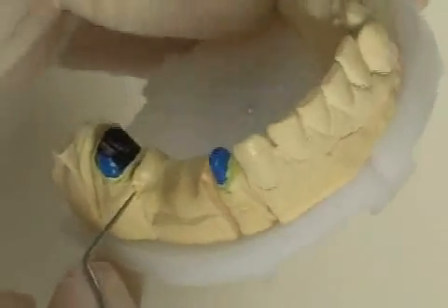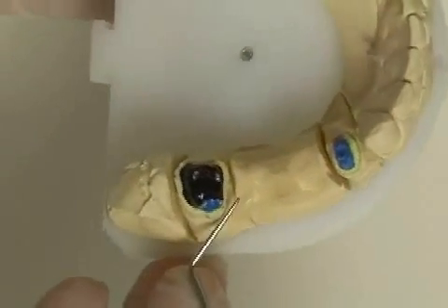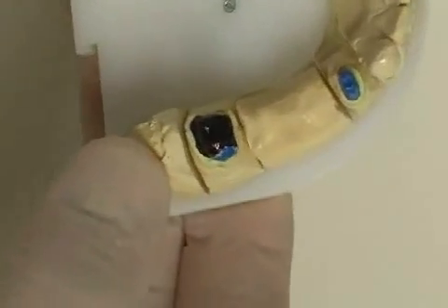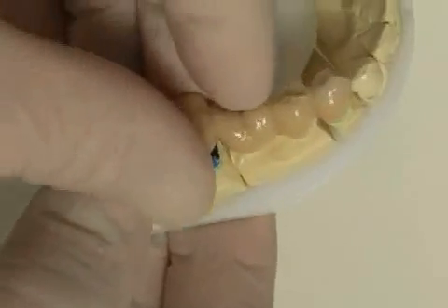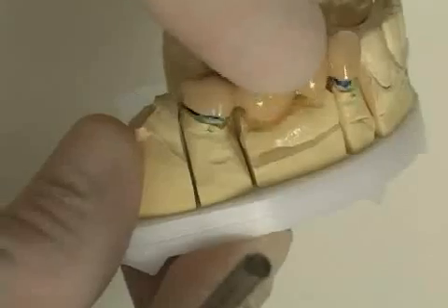Now the bridge can be fastened so that, at least in this case, the pivot tooth supports a bridge. A good root canal treatment is important for the creation of a pivot tooth and a sufficiently deep excavation for the pivot in the root canal.